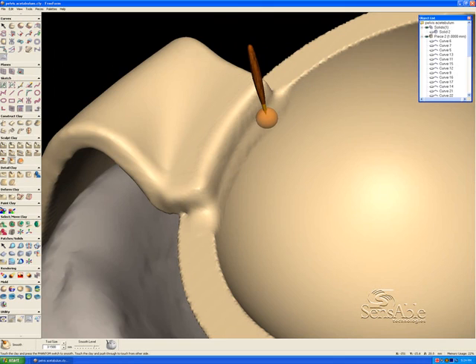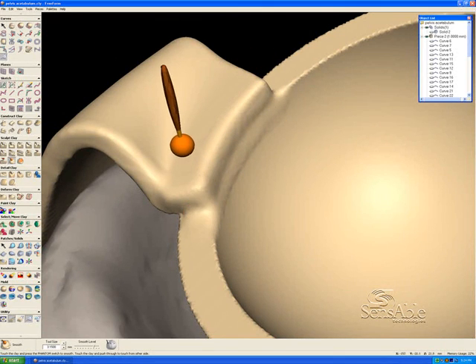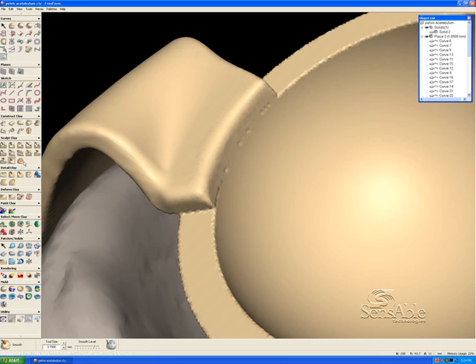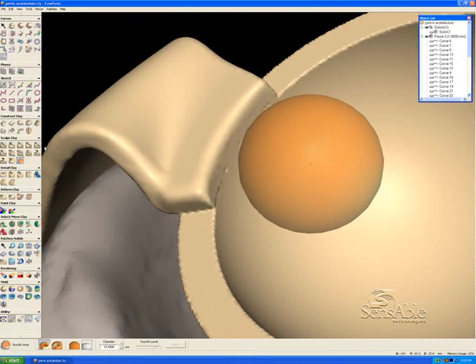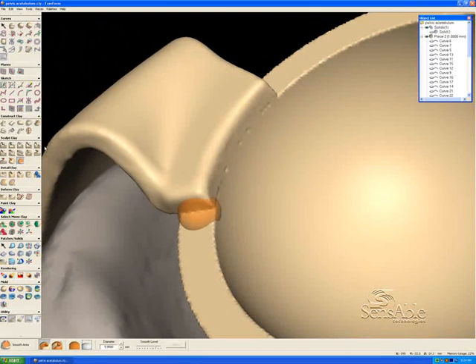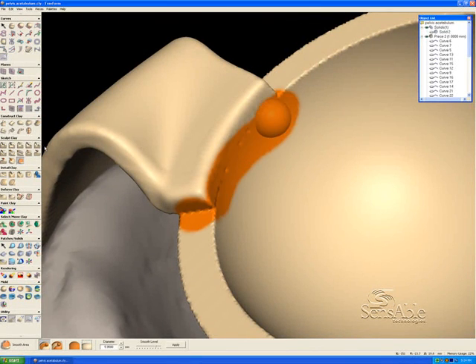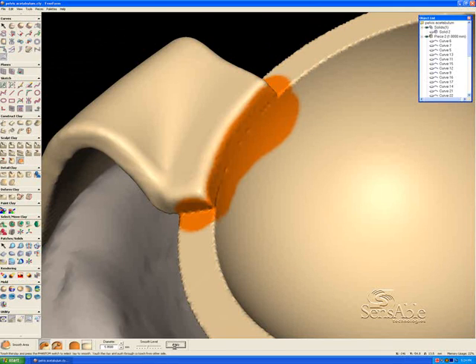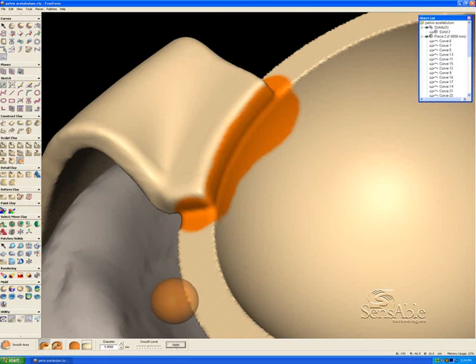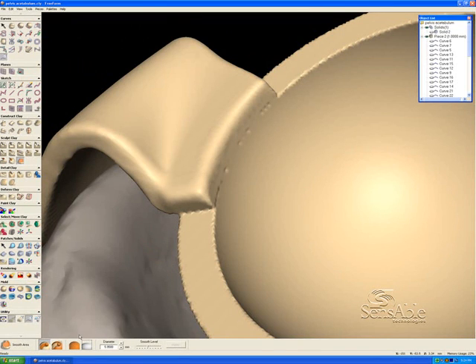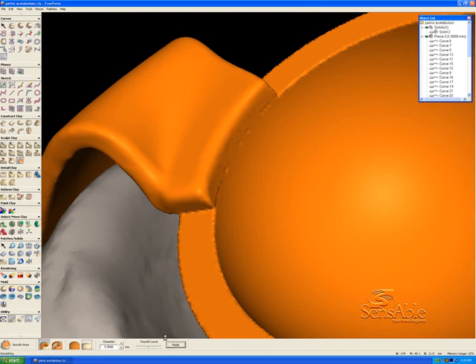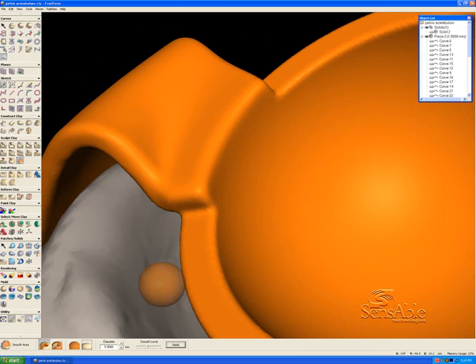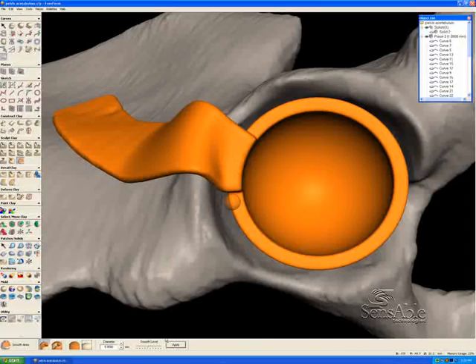You can do this in a number of ways. You can do this manually like I'm doing now or you could, we'll undo it, we'll do it a different way. You could paint a selection area right here. Let's just make this a little bit smaller. So you could just simply paint a selection area and get the other side there without even looking at it. And then apply a smooth level that's about medium here. And we can see how that's rounded that out. One way to get a very consistent smooth is to select the entire object that you're smoothing. And you'll see that the result here after I apply this is that the edge around the cup will have a uniform fillet or a uniform round. So that's my preferred method for this particular use. So very quickly we've created a volume here off of the imported solid.